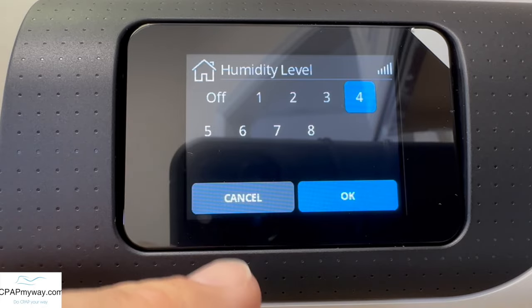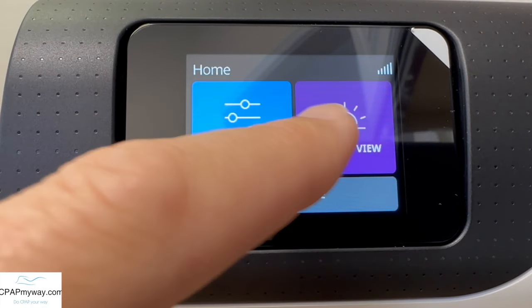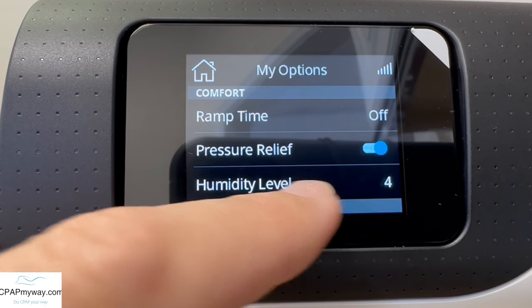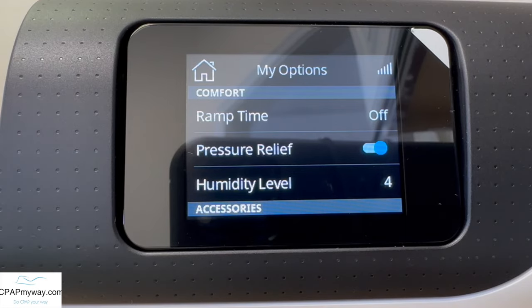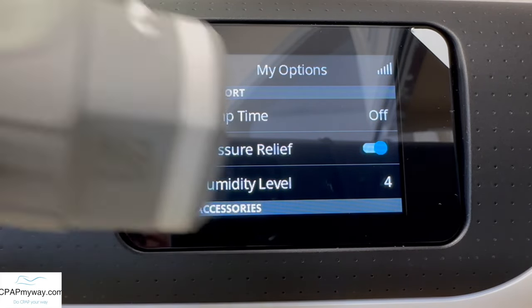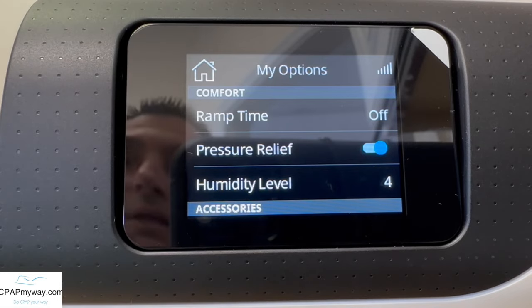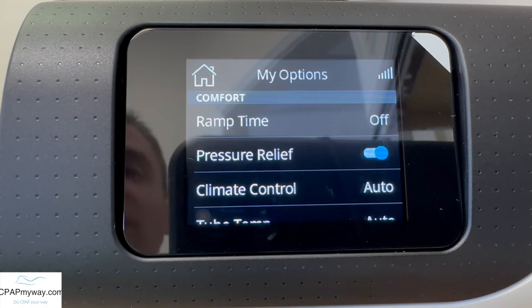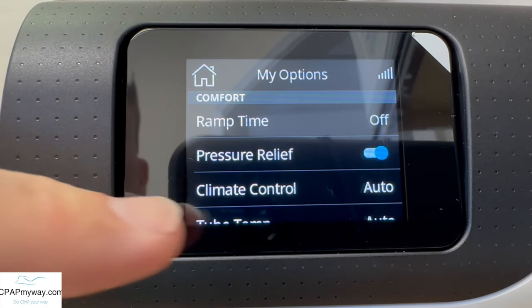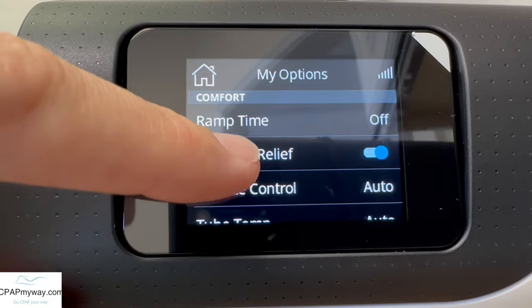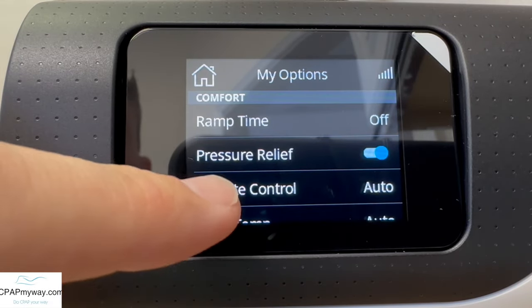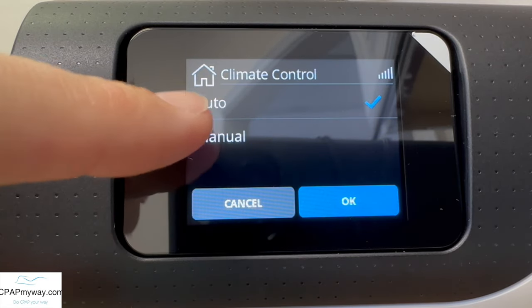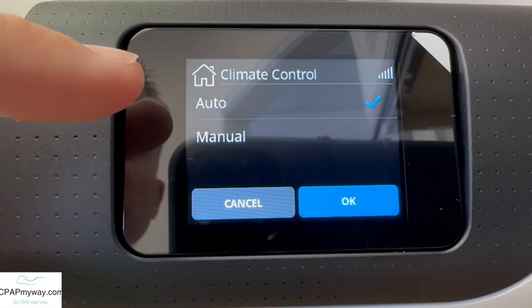Next down here is humidity level. If you do not have a climate tube attached, you'll notice just a humidity level of four. If you have your climate line attached, I'm going to plug that in for you. You'll notice a little bit more settings. I'm going to go through that and then unplug it and show you just the regular humidity since that's a simpler deal. You'll see climate control, and if you scroll down, tube temp.